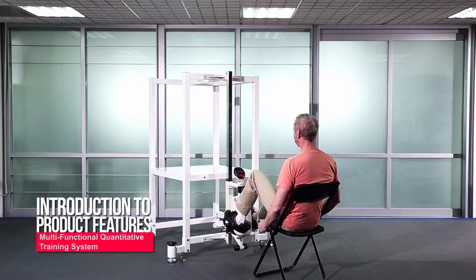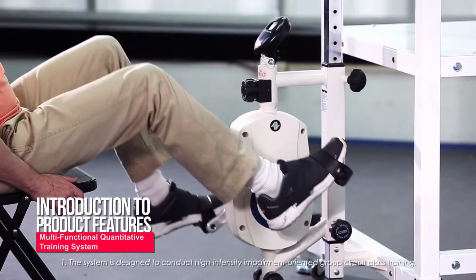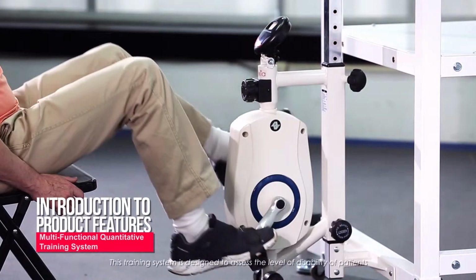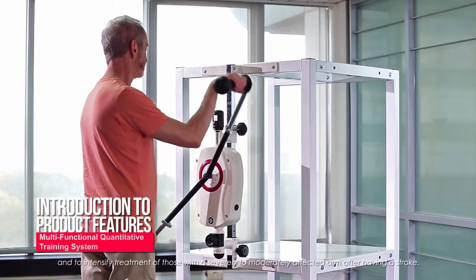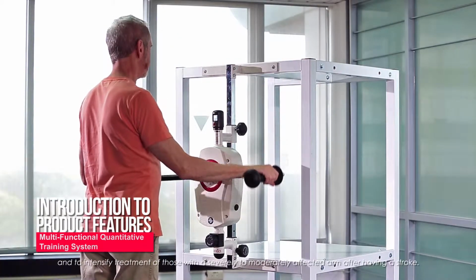Introduction to product features. 1. The system is designed to conduct high-intensity impairment-oriented group circuit class training. This system is designed to assess the level of disability of patients and to intensify treatment of those with a severely to moderately affected arm after having a stroke.